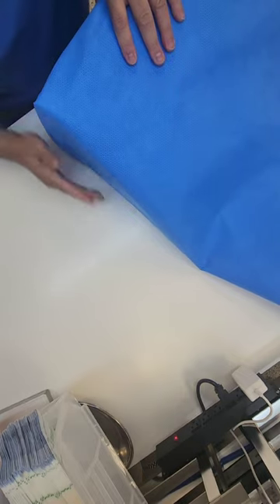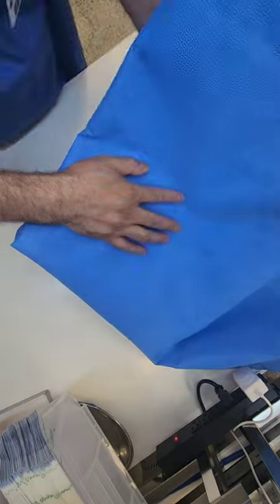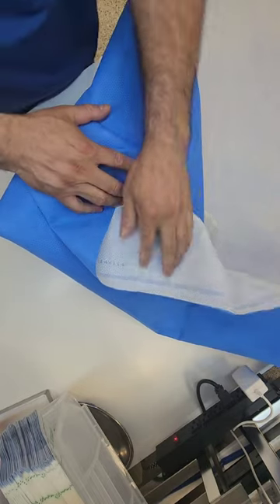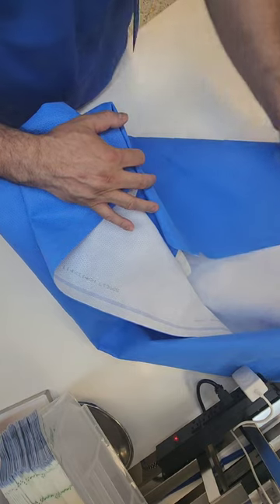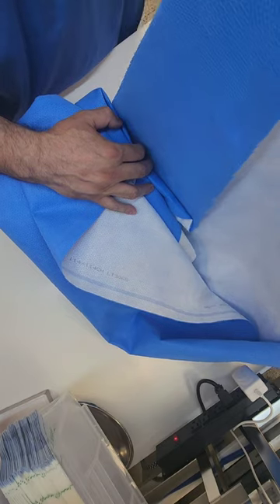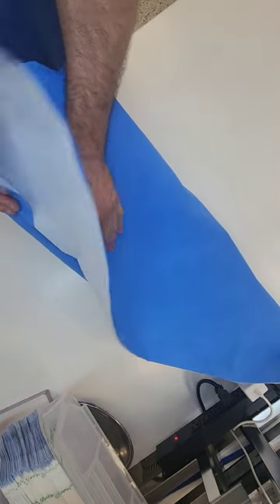And when you come over, you want to make sure that you're really snug on the side of the triangle. Now when you do that, your fold will slant and you'll have some overhang — and that's fine, don't worry about that overhang. What you're going to do is go ahead and create your little folds here, and you might have to tuck down on that one. The next side, you're going to tuck over and create that flap to get that seal. Again, extreme on that one, and you're going to come all the way across. Really, really deep — you want to get real deep and then walk out a little bit, so that you're parallel with the back of that triangle. And again, a nice, tight fold over to the side here.